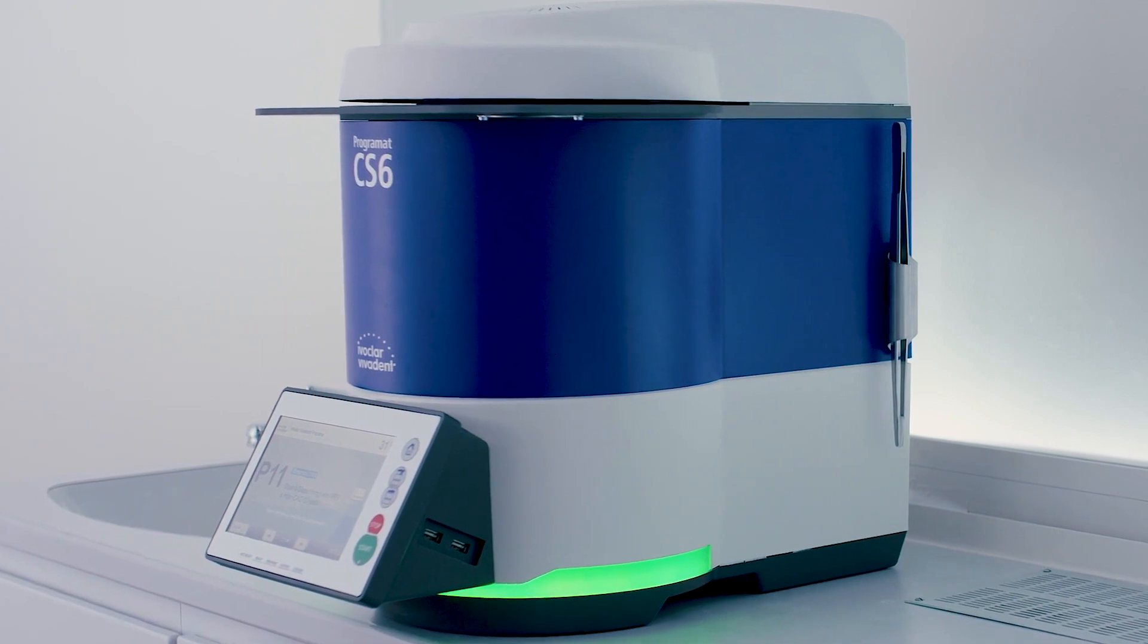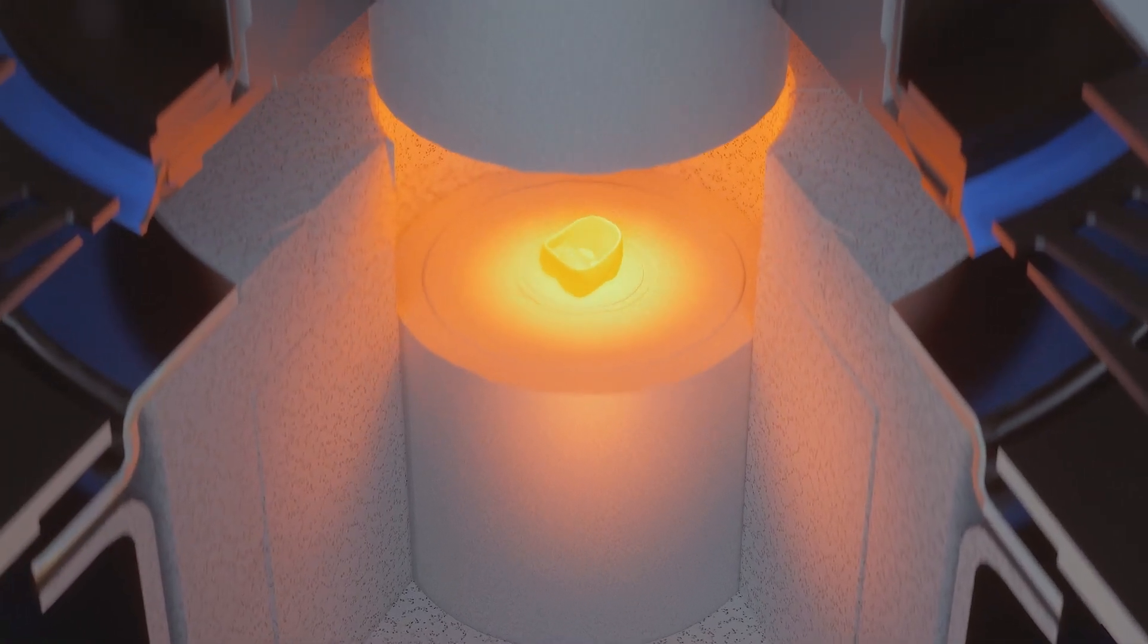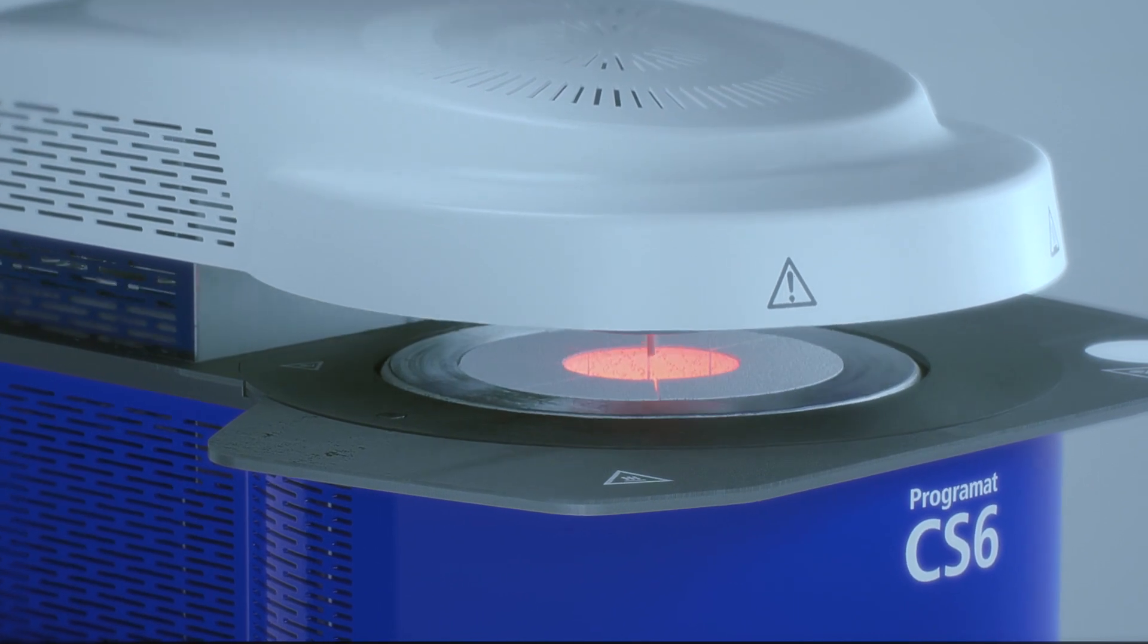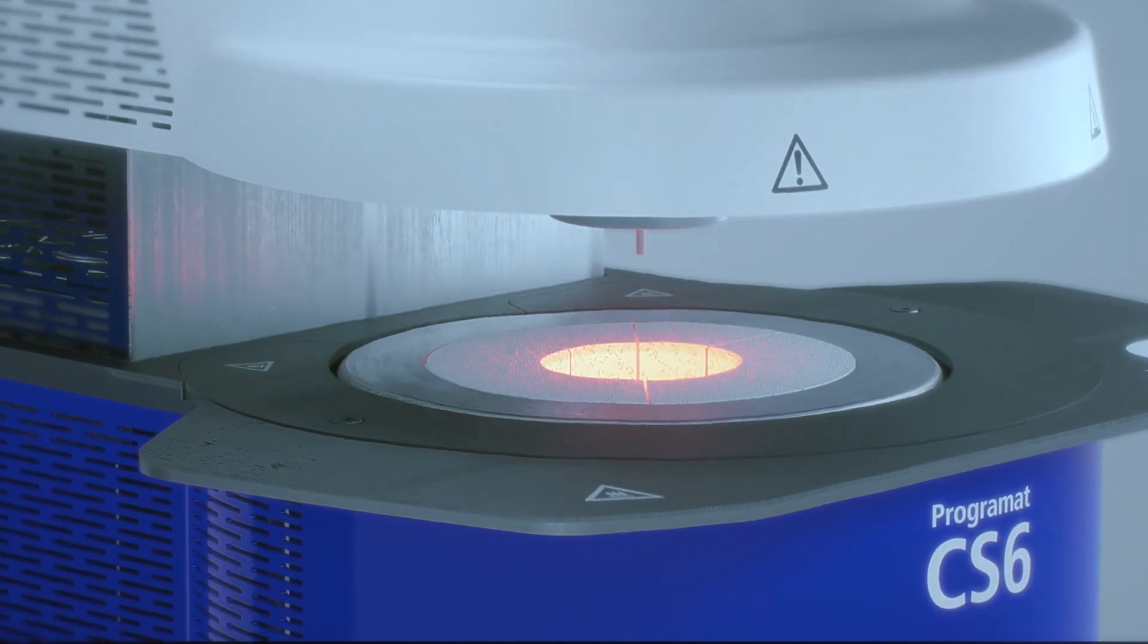The PROGRAMAT CS6 is the first dental furnace to use a combination of vacuum and fresh air flooding for the sintering of zirconium oxide restorations. This innovative process produces a quicker result with visibly better aesthetics.